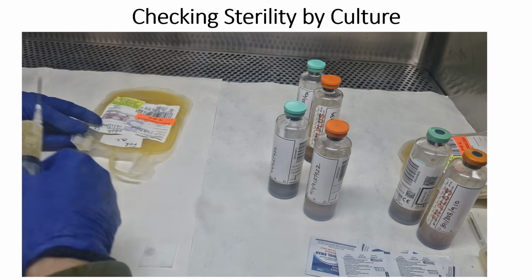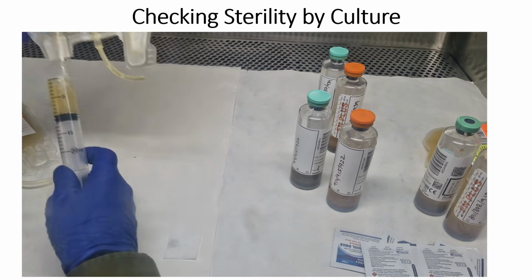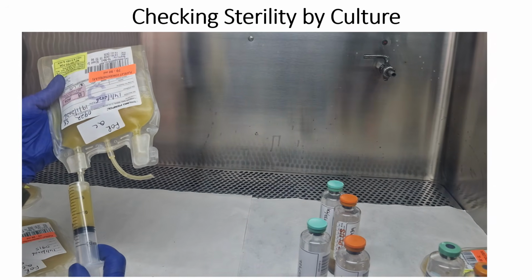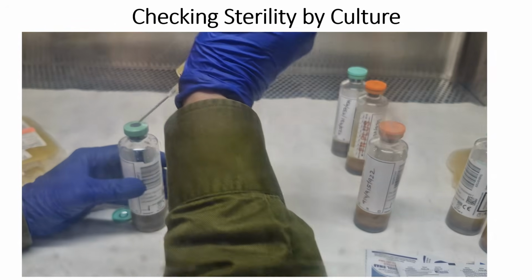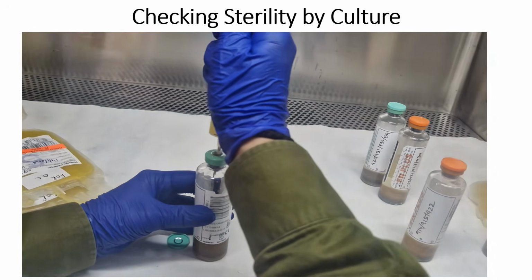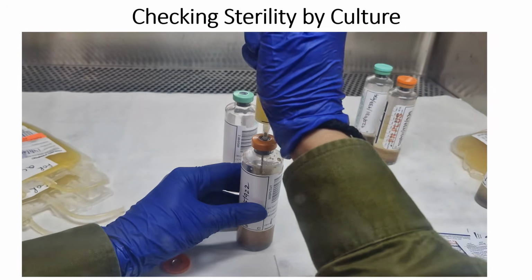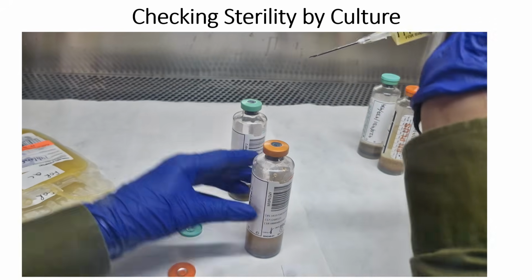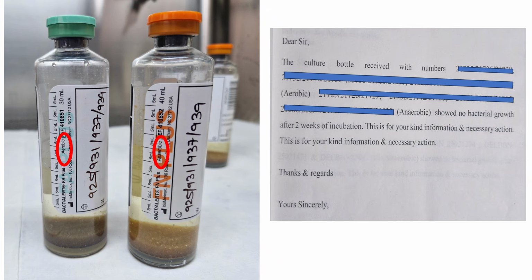To check sterility by the culture method, we will place the platelet concentrate for QC into a laminar airflow chamber known as a laminar hood. We will transfer a few ml of platelet sample into anaerobic as well as aerobic culture bottles. The samples are sent to the microbiology lab where they will be incubated for 72 hours and 14 days, and they will be checked for sterility. As we can see from the results, after 2 weeks of incubation, there was no bacterial growth in both aerobic and anaerobic culture samples.